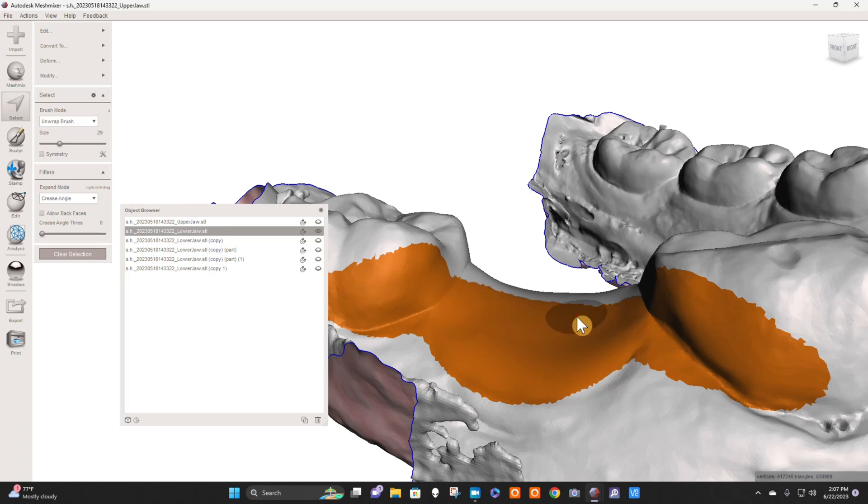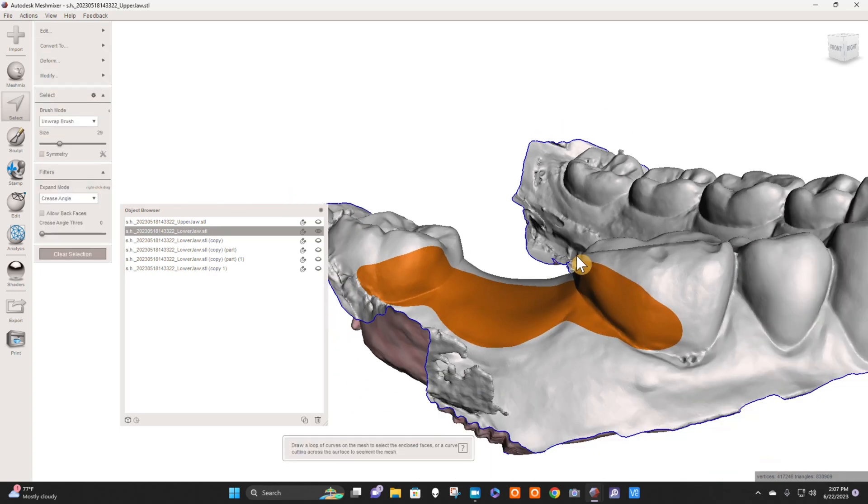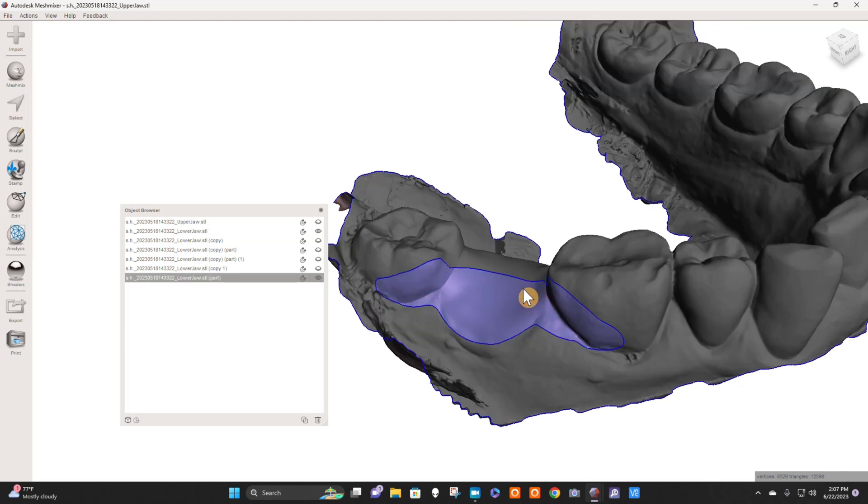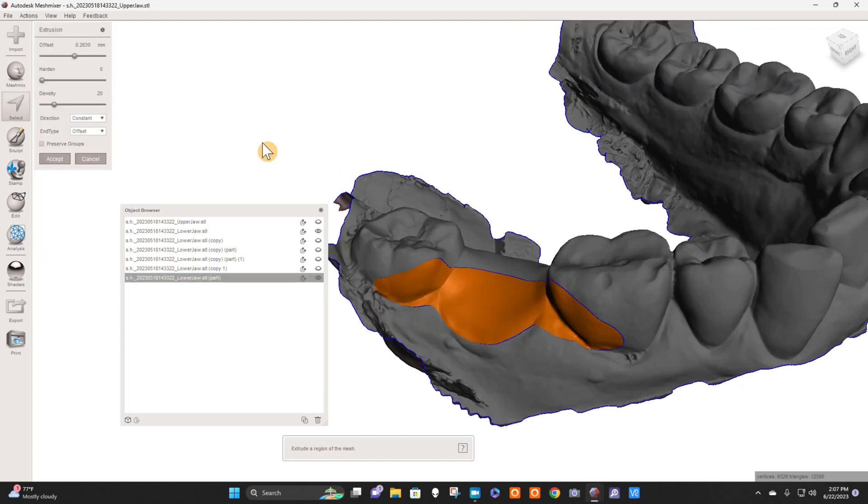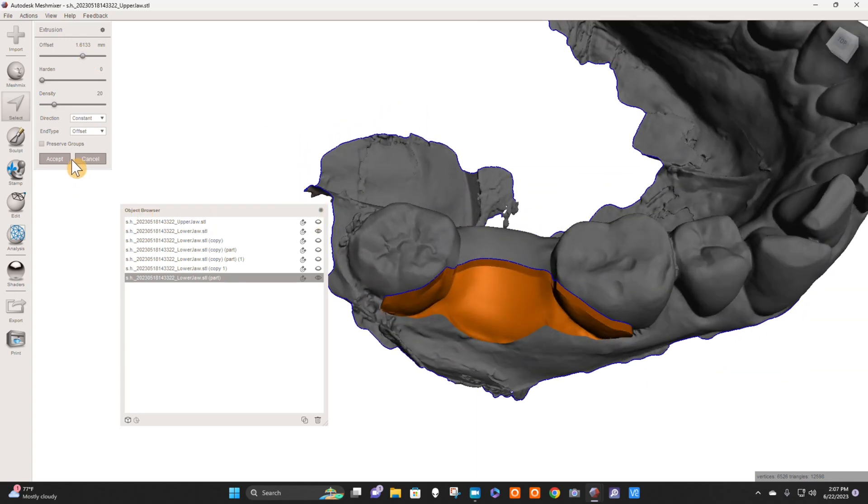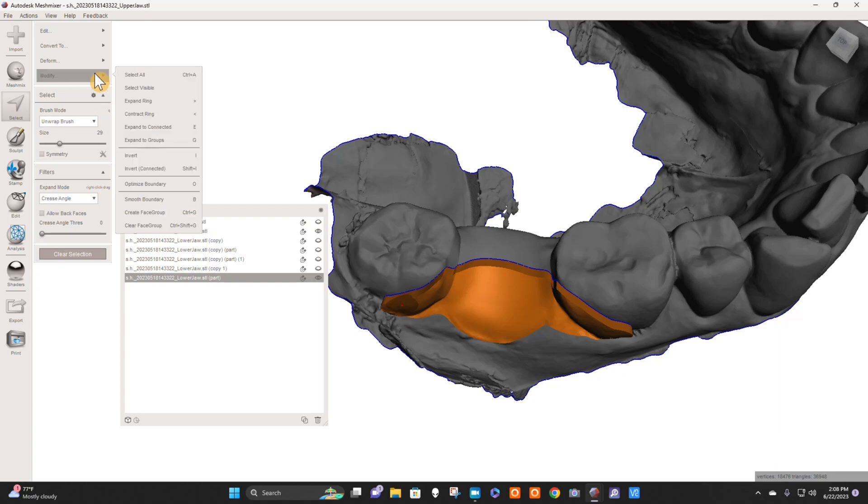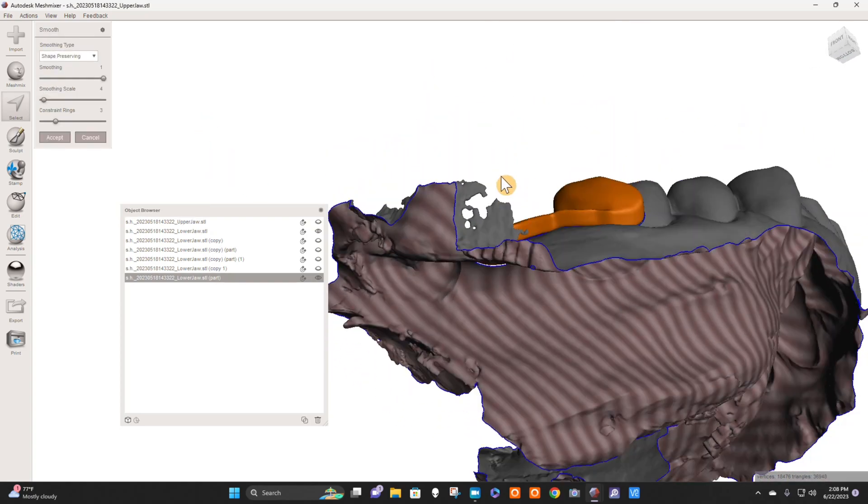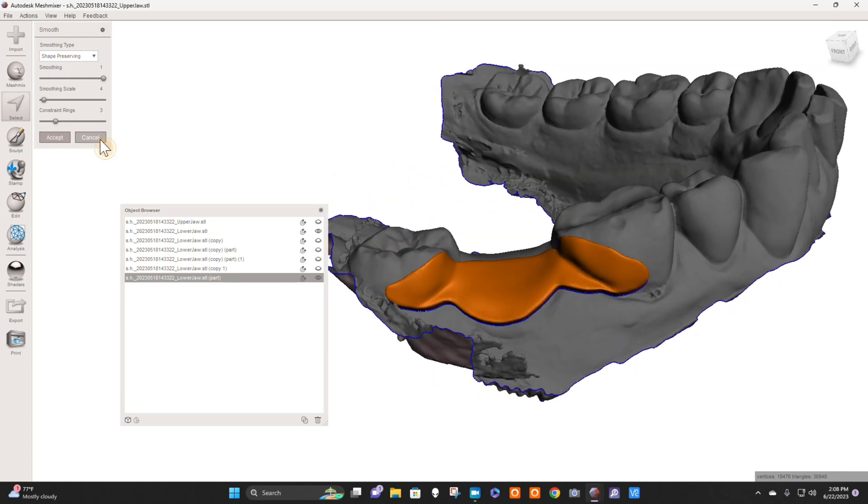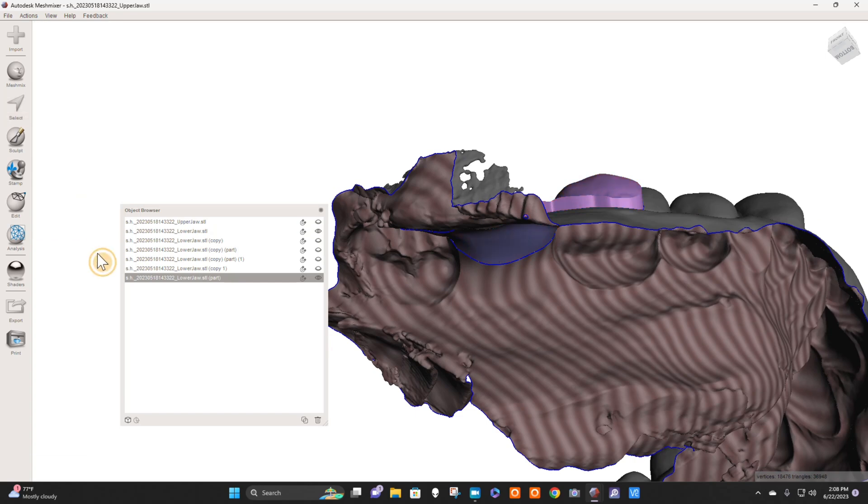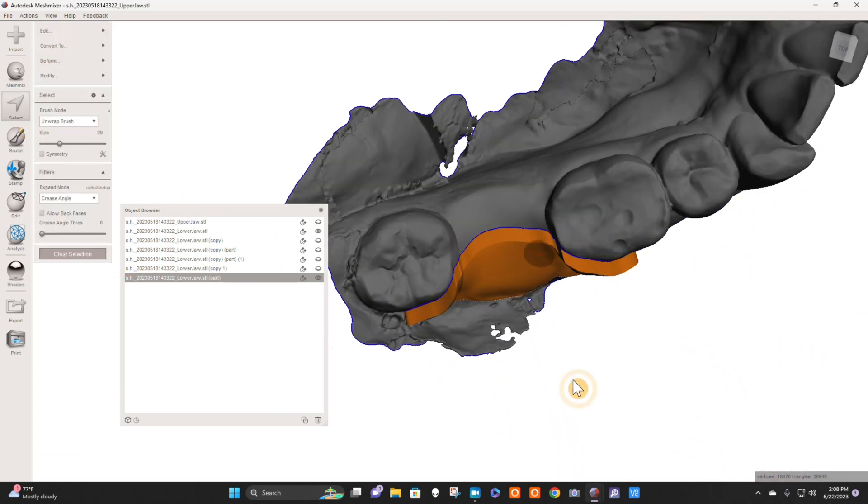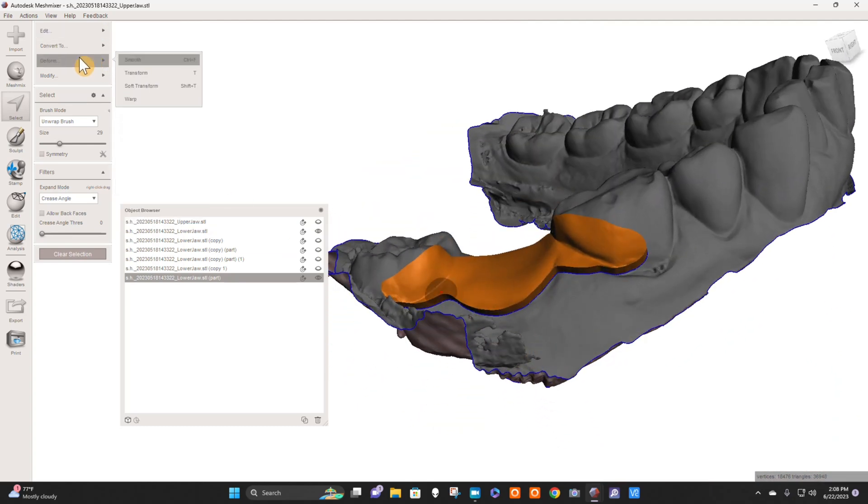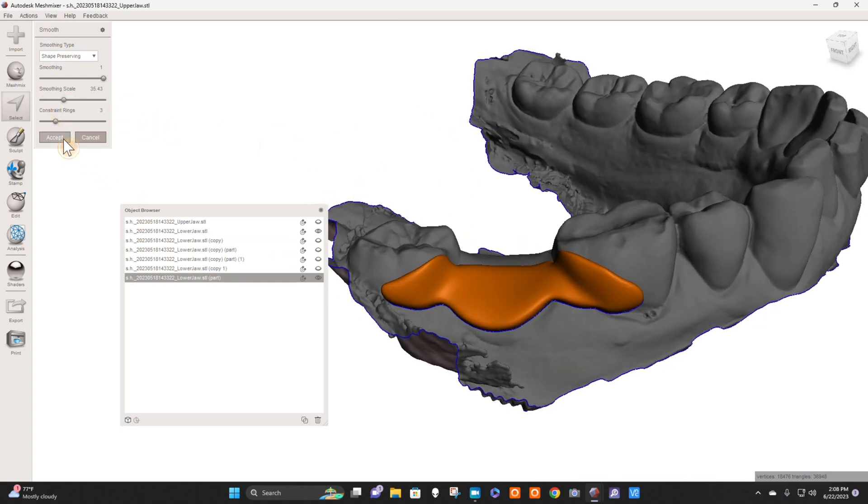I would probably do something like this, and I would hit B for smooth border, Enter. Then I would hit Y for separate, Ctrl A for select all, D as in dog. And then I would put it at an offset of about 1.5, 1.6, and then I hit Accept. And then I would double-click this and hit Deform Smooth, just like that. Actually, I would clear selection. When I deform it with the smooth, I just select the outer surface so it doesn't deform the inner surface, and I go to Deform Smooth like that. And I would bump the smoothness up a little bit. Beautiful. Okay, I'd do that.